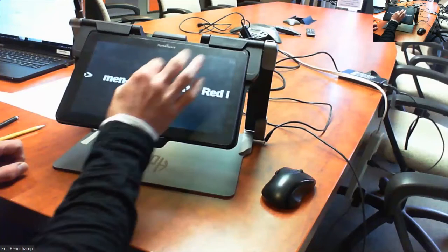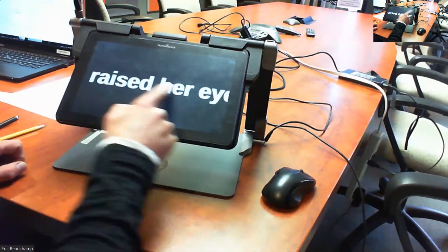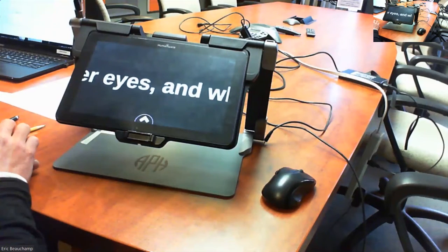This is useful because you can zoom in and almost have one word on the screen. So I can reduce that speed here. Again, with my gestures, I can reduce that speed so you can have one word almost on the screen and have it read out by the student.